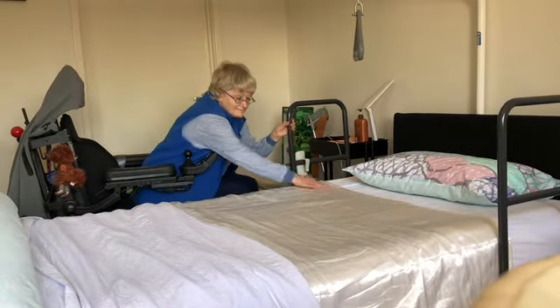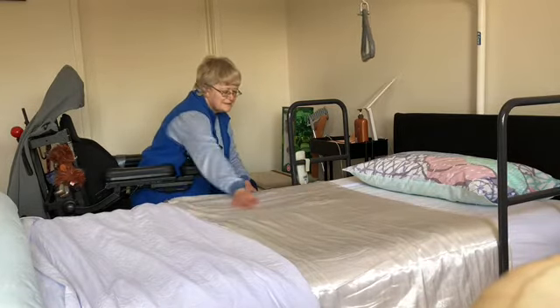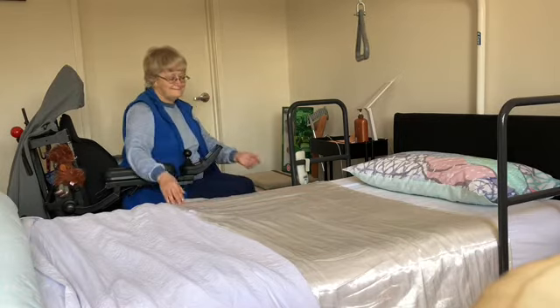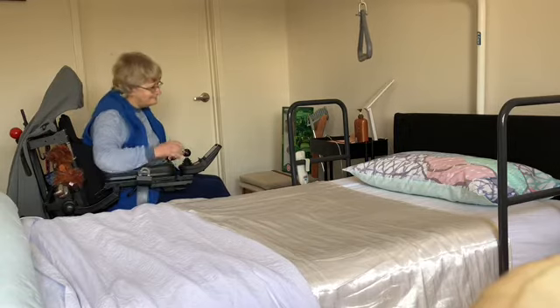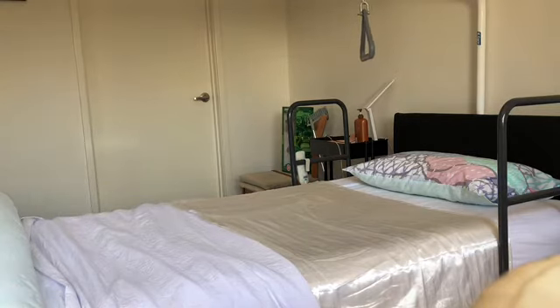Now I'm showing you my satin strip. I've got a strip of satin sheet on the bed which I made out of a whole satin sheet, and that's to help me turn over because I have so much trouble turning over now. With the satin on the bed it makes it a lot more slippery and easier to turn over. The combination of the side rails and the satin sheet makes it much easier. I didn't want a whole satin sheet — just strips that tuck in on both sides. This shows you how the sheets fit.